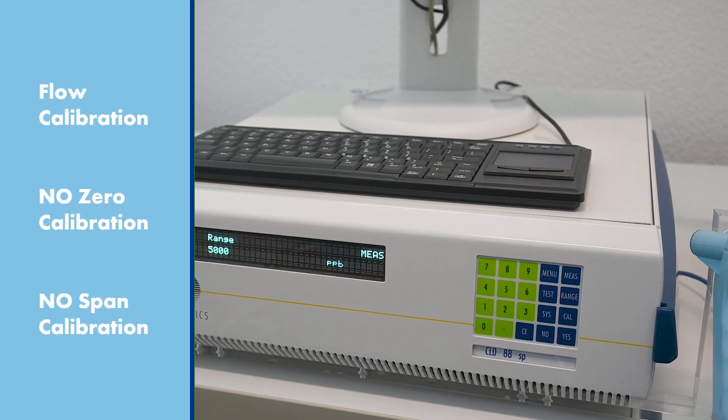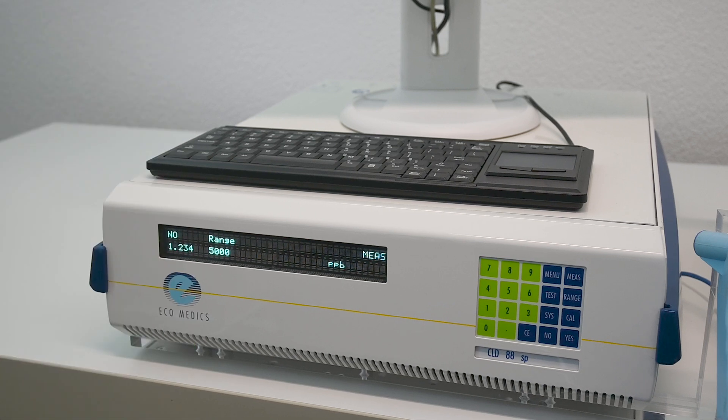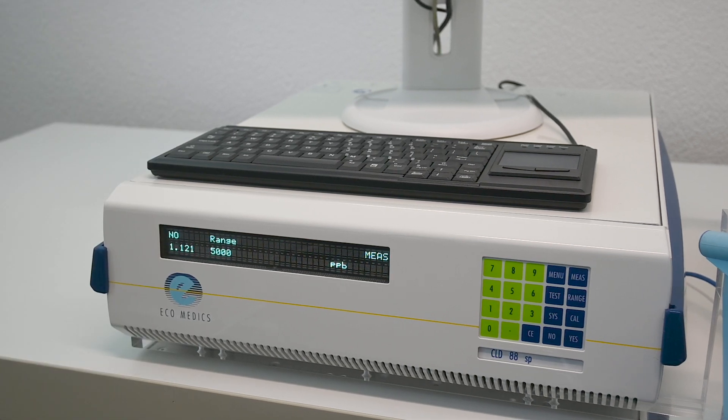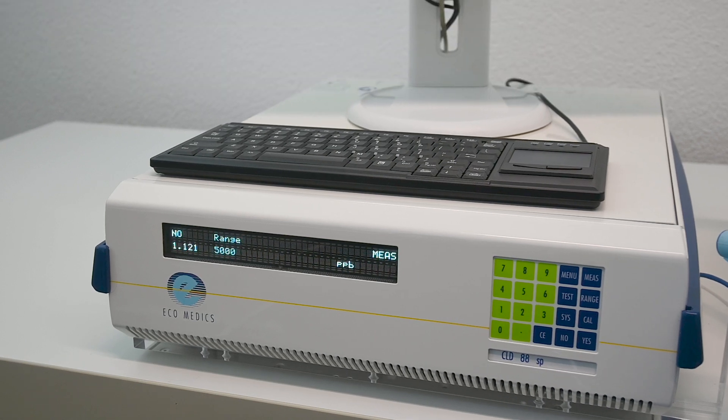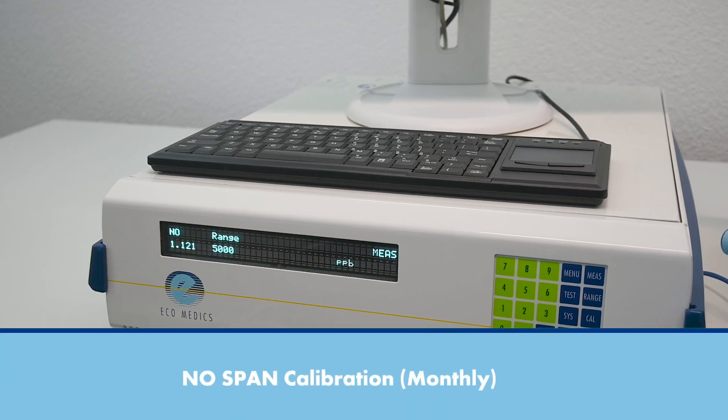and finally, an NO-span calibration. The flow calibration and NO0 calibration should be conducted daily, while it is sufficient to conduct the NO-span calibration once a month.